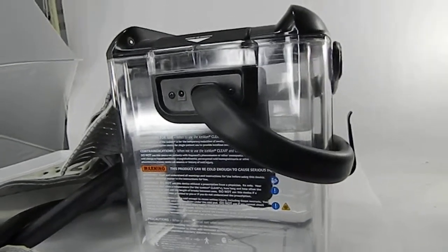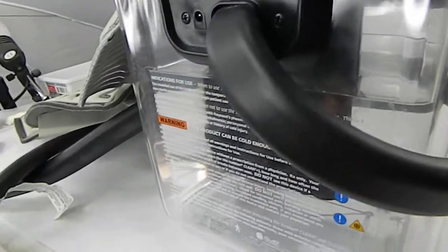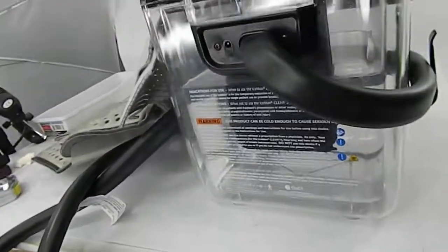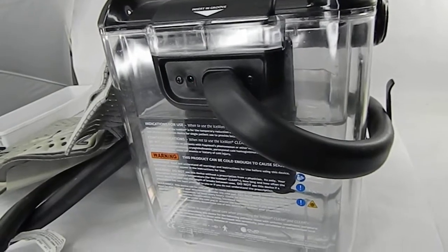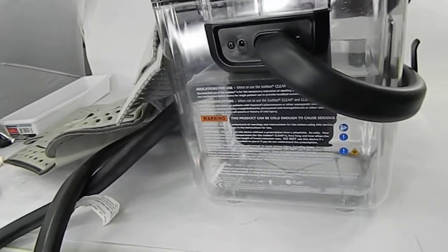Hi there, just taking a quick video of the Don Joy Iceman Clear 3. I'm going to be selling it as is for parts, and I will be emailing whoever purchases to confirm they understand it is for parts, no return.